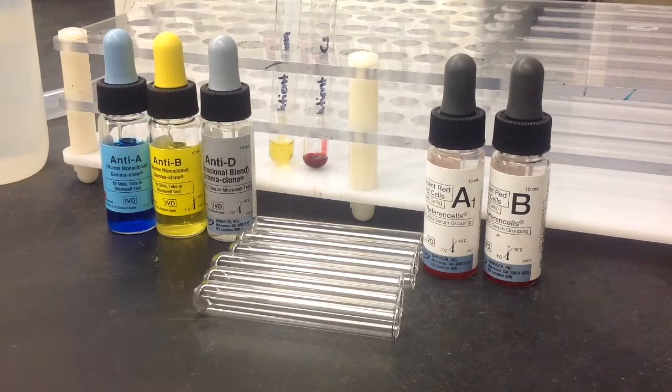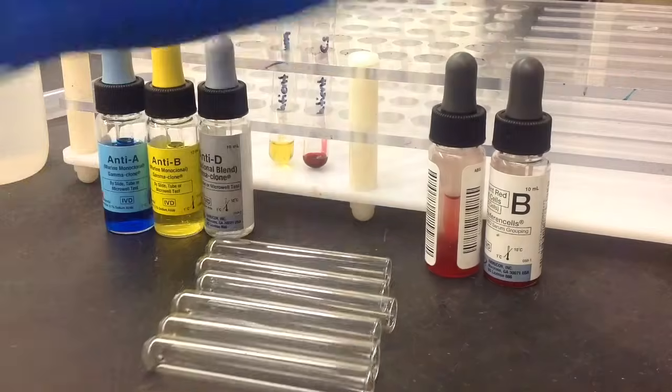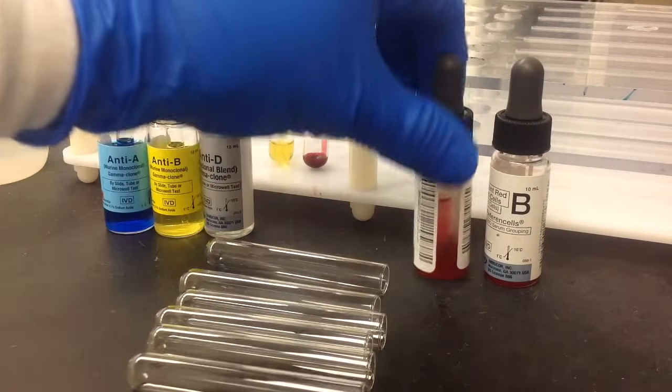You're also going to need, for your reverse typing, your reagent red cells A1 and B.